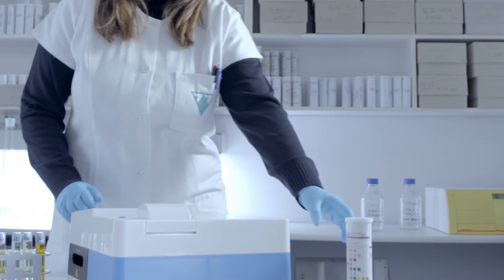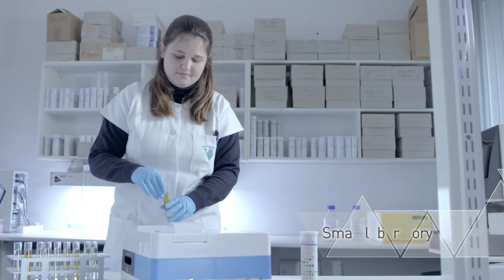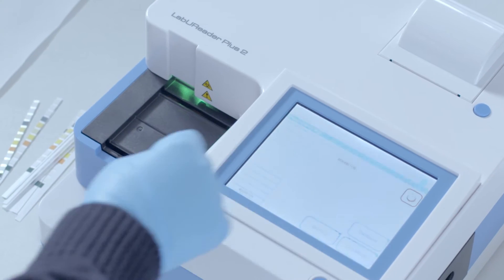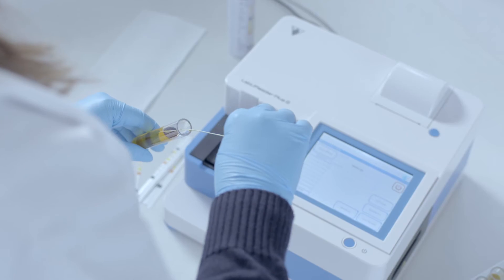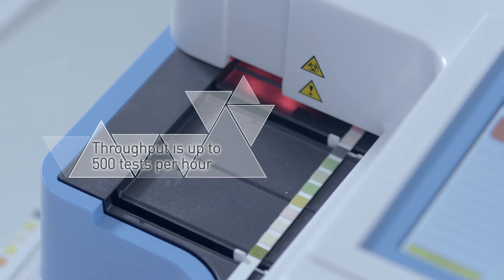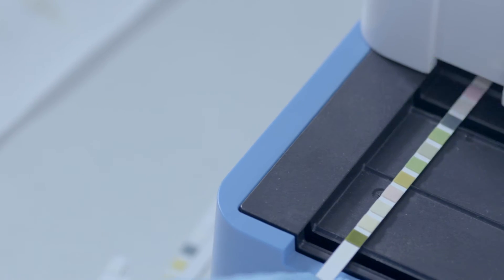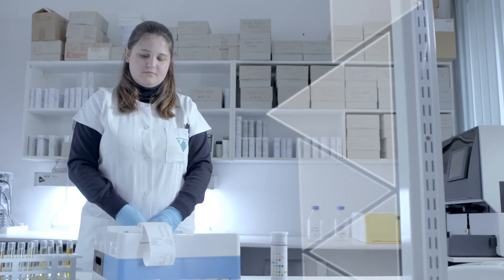LabuReader Plus 2 is intended for smaller laboratories, emergency or pediatric departments, or can also serve as a backup instrument for automated urine analyzers. Extended software functionalities such as worklist transmission from LIS network facilitate the work in higher batches.